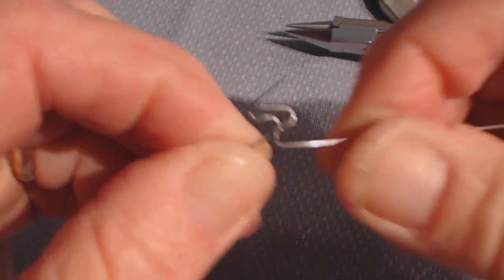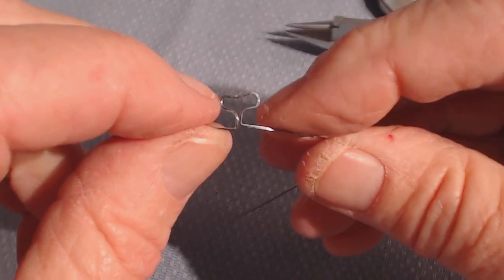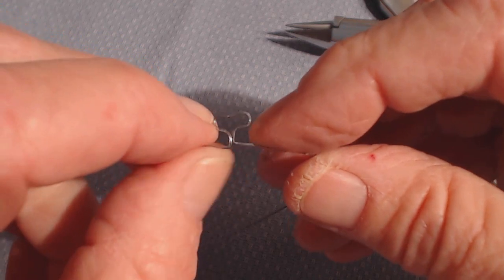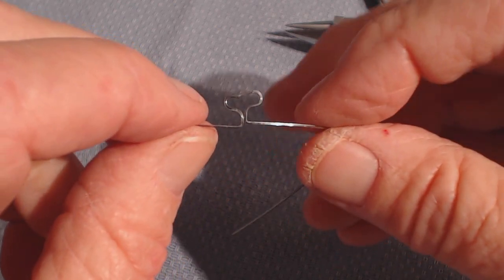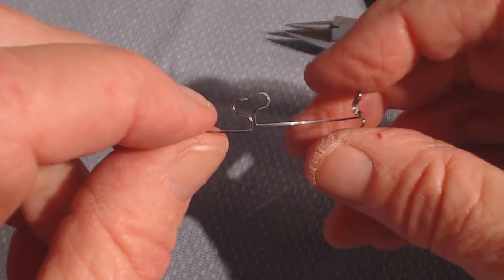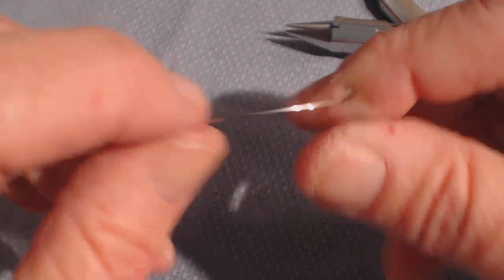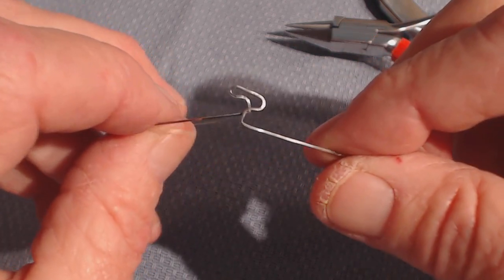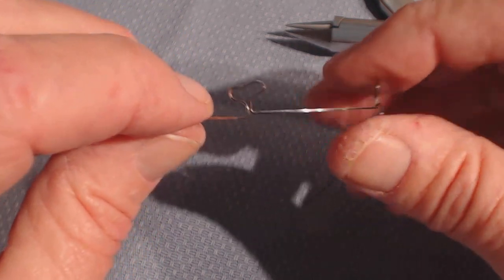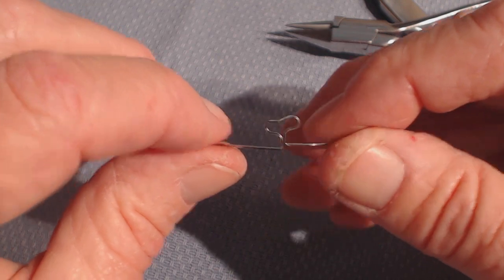I would like you to remove the wire and do this extra-orally. Number two, do not try this on a keyhole wire. Don't get me wrong, it can be done, but it's exceedingly difficult. This amount of flexibility in the loop is much better than a keyhole for the intrusion bend. I suggest you order a couple of extra 19x25 T-loop wires and practice that intrusion bend so you are accomplished with it.